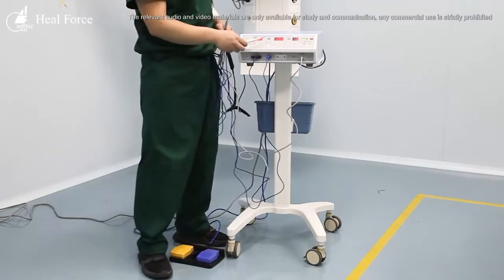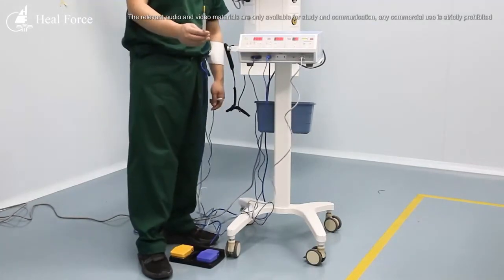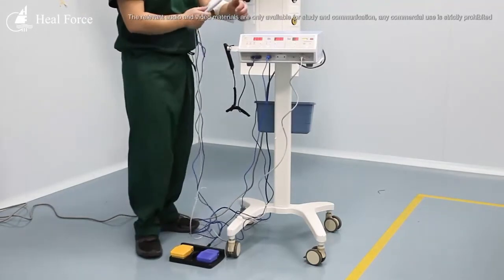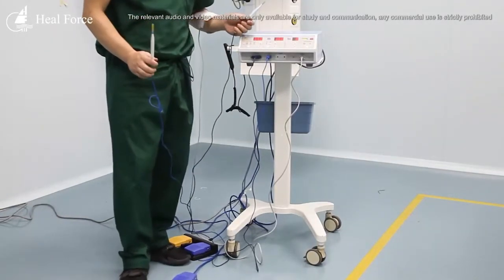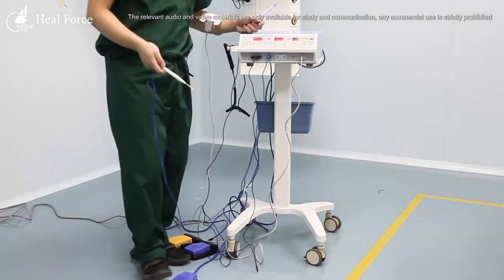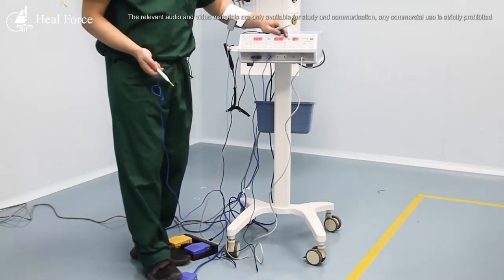The other pencil is for bipolar mode. This one can only be controlled by a foot control. This single pedal foot control operates the bipolar mode for this pencil.